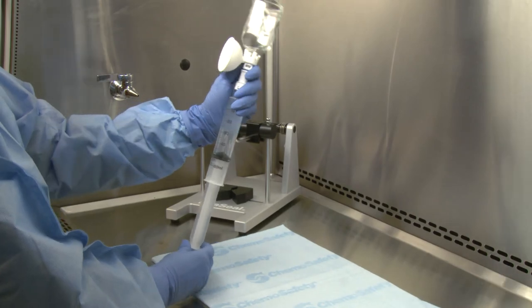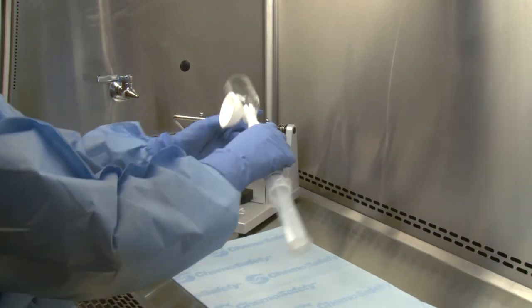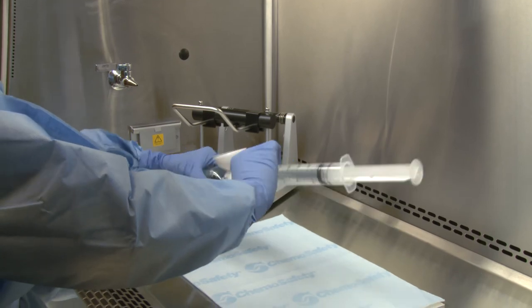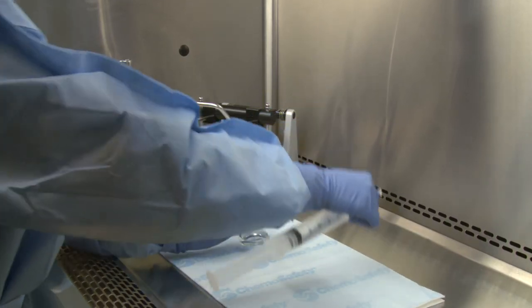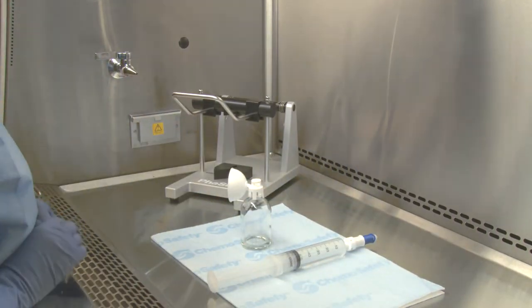Then, disengage the syringe unit from the vial assembly using the pull-turn-pull technique. The syringe unit containing the drug is now ready for administration or further preparation.